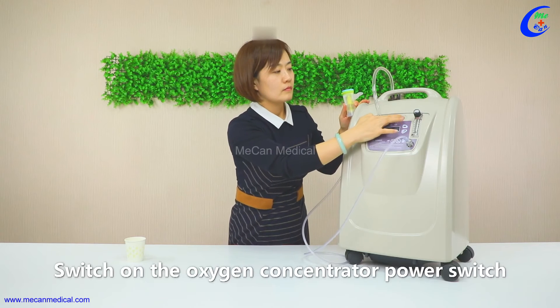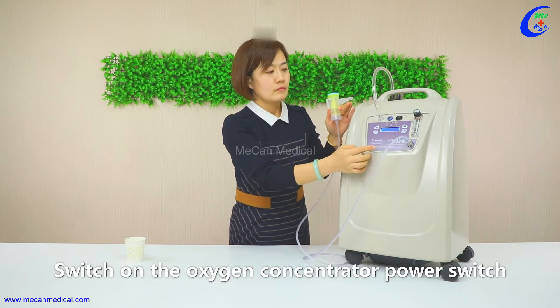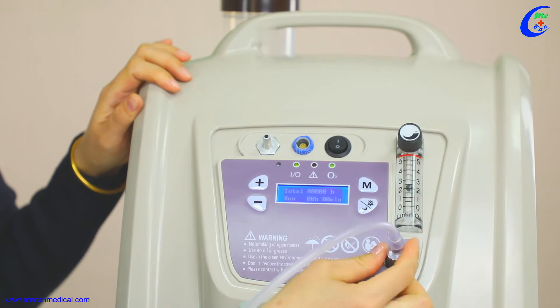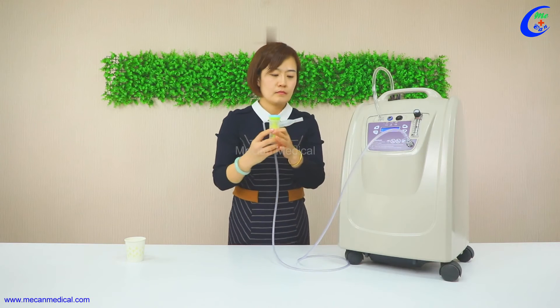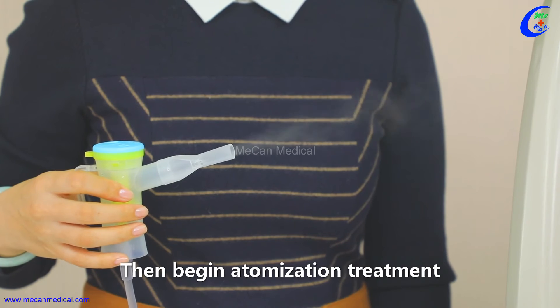Switch on the oxygen concentrator power switch, then begin atomization treatment.